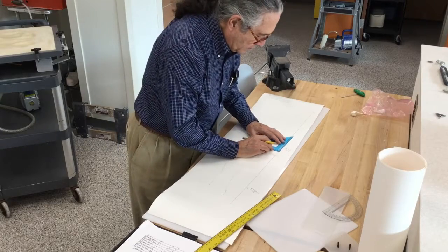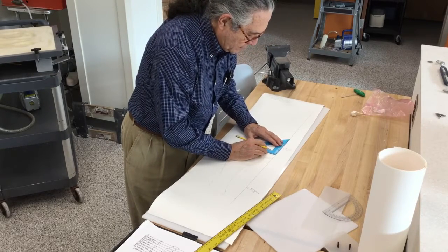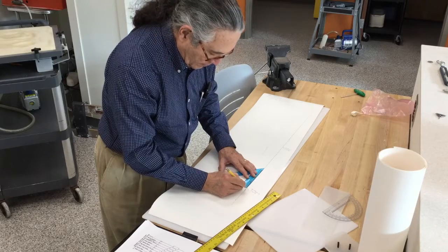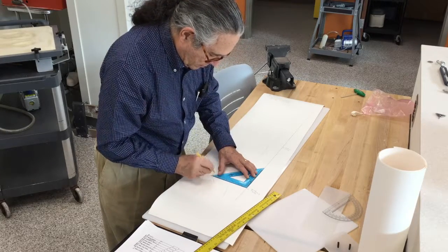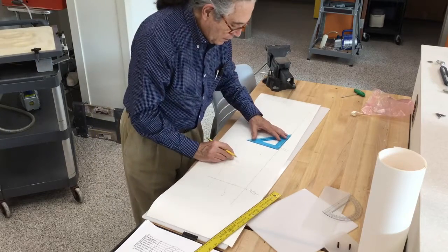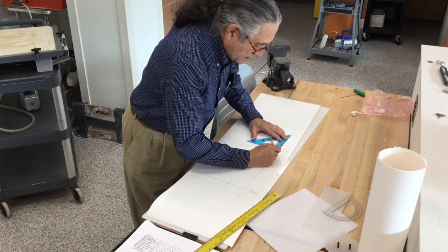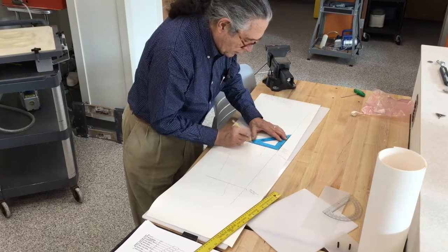From the neck of the fibula, we said we had 20 millimeters of clearance, so we mark that point, and from that we mark 37 millimeters, which is the width of the band. Using your square, you make a line perpendicular to the mid-sagittal line at the height of the ankle joint — notice this goes from the mid-sagittal line all the way across the outline. From the neck of the fibula, we make marks at the proximal band line and distal band line, and they only cross within the outline.